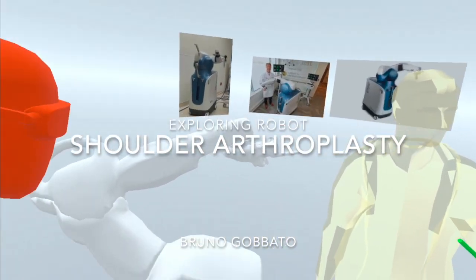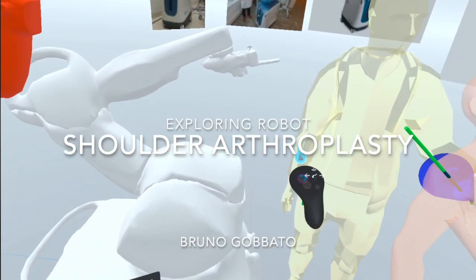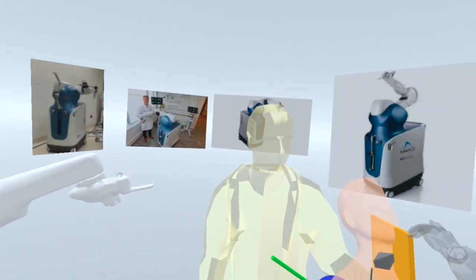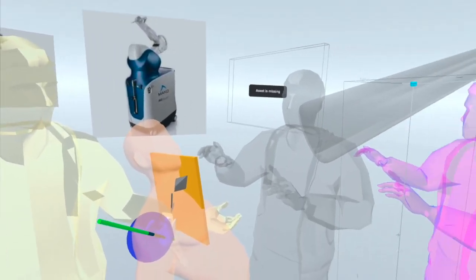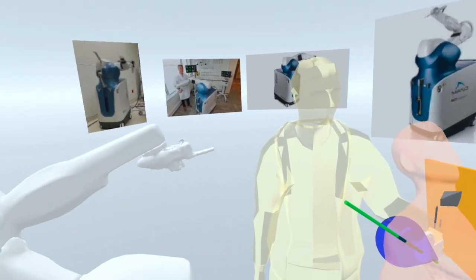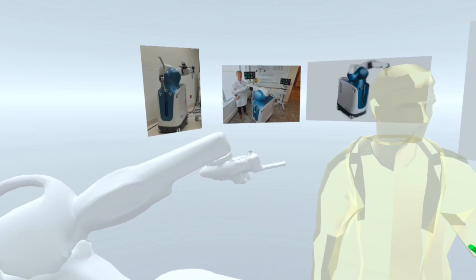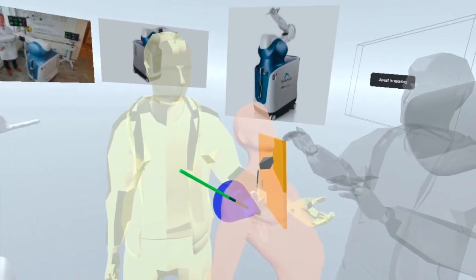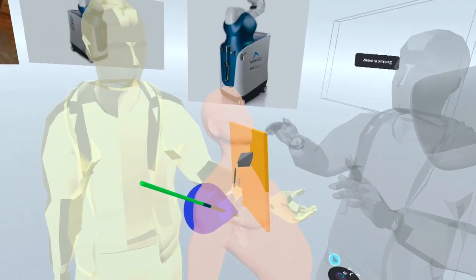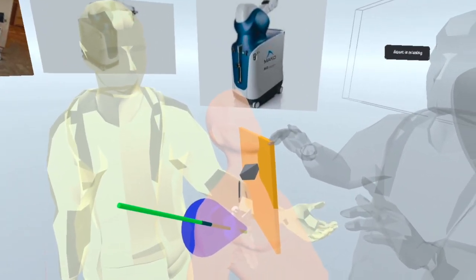We are here in an OR room with a robot arm based on Mako from Stryker. We are prototyping how a robotic shoulder could help surgeons and how difficult this can be.